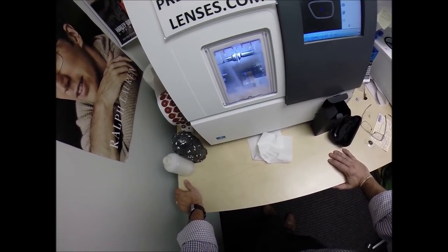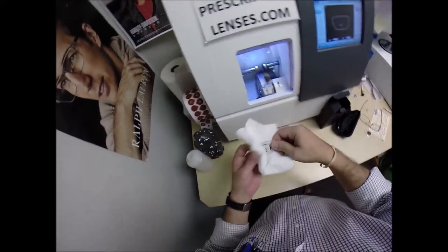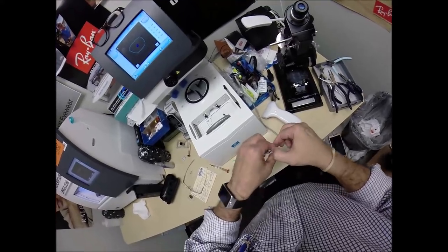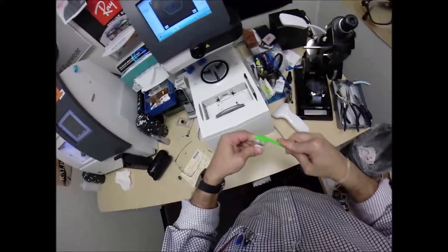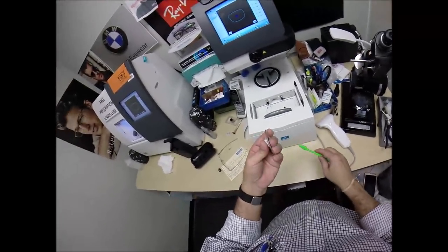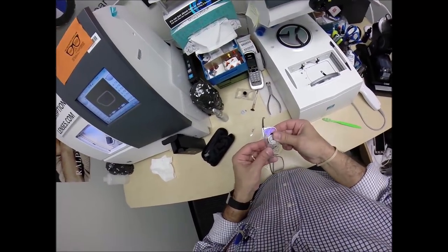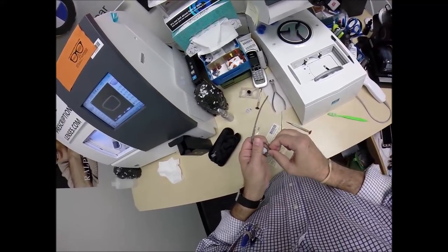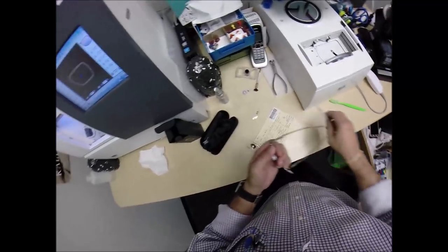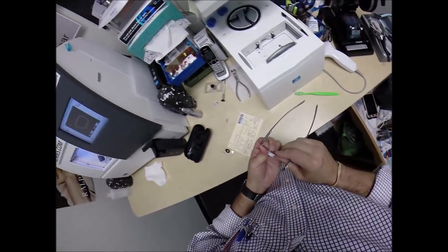Now, Yas — I want you to open the door with your mind this time. Well done, Yas. Let's see how much optical sawdust I've got to take off this time. It's amazing what tools you can use in the optical world that can be applied elsewhere. Hopefully that will fit — that went in a whole lot easier this time. Let's tighten that screw down.